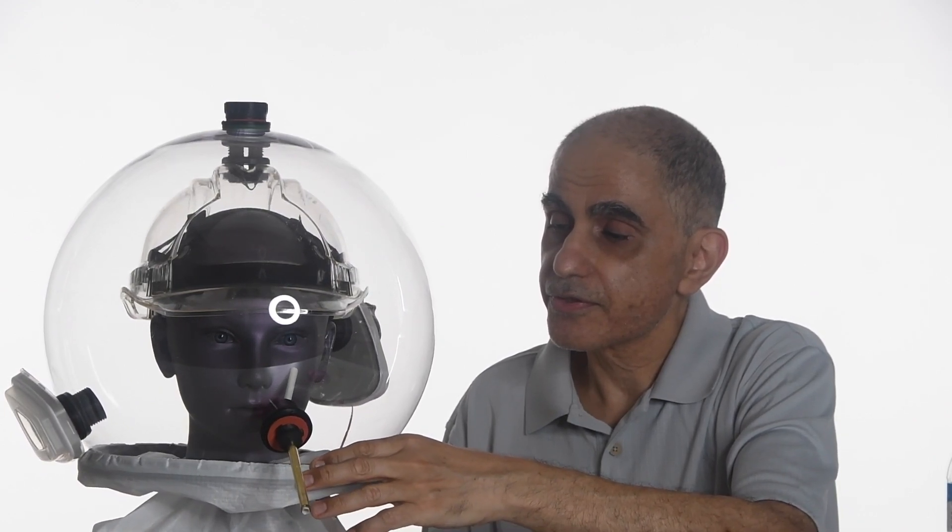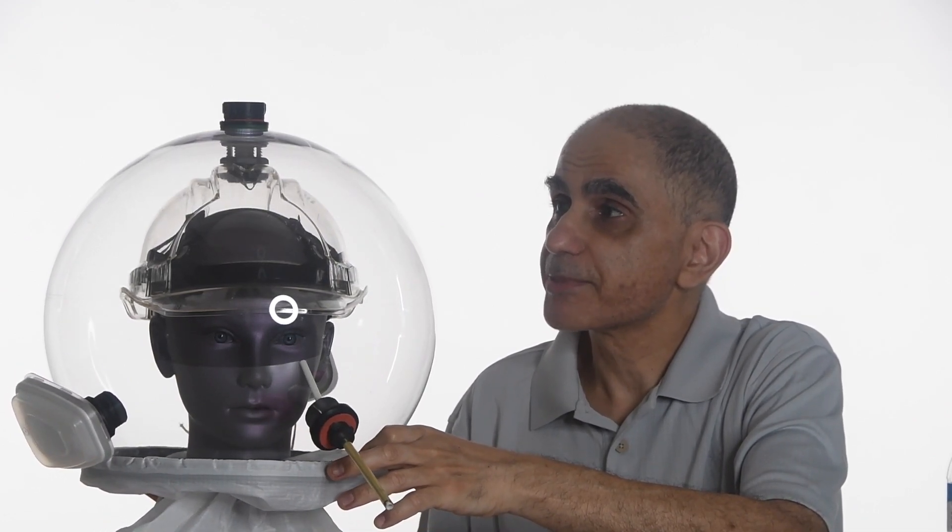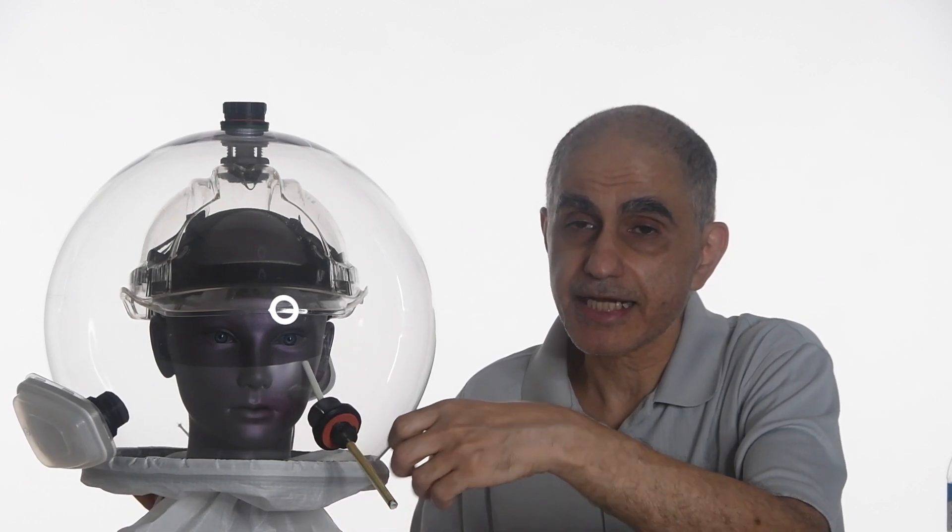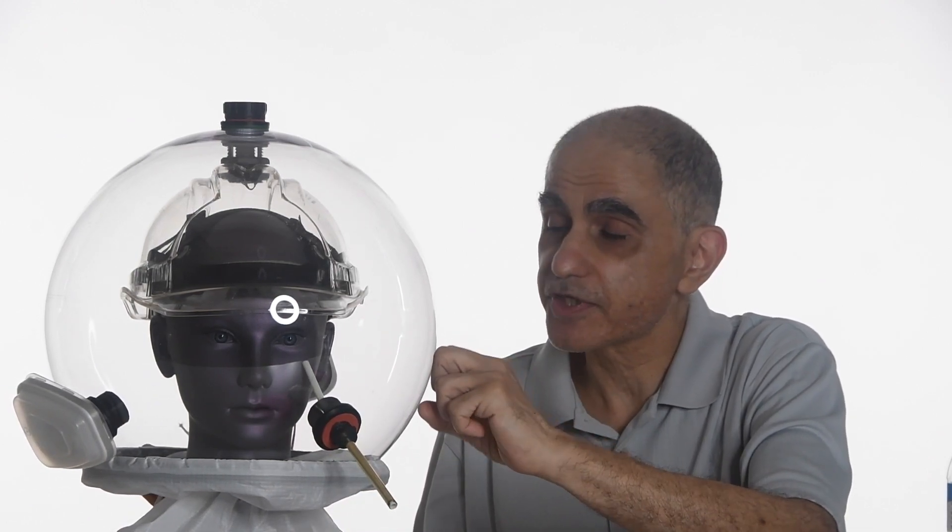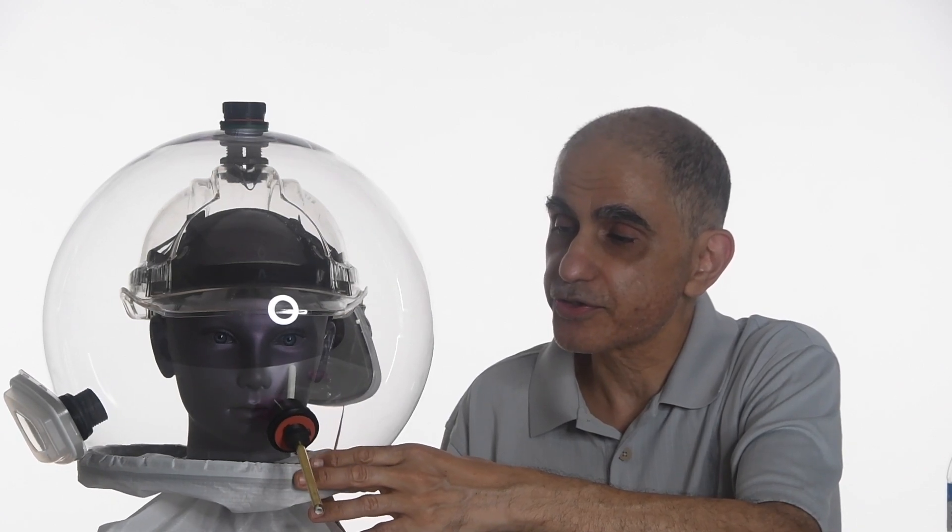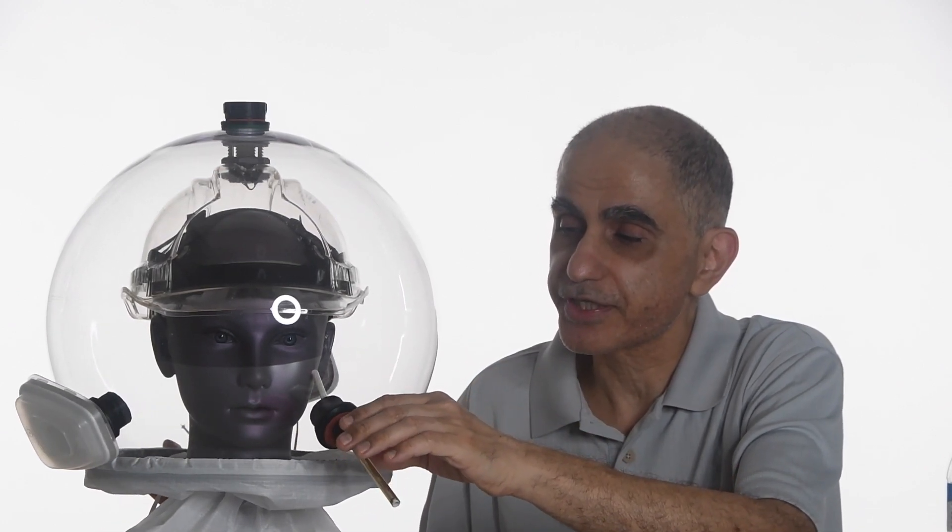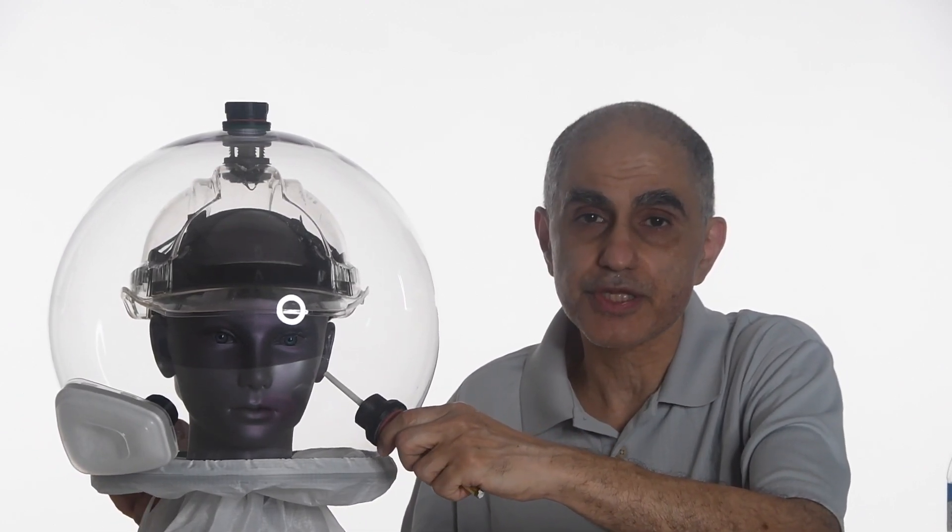The shell is mounted on a swivel. The shell is attached via a swivel connector to the hat so that you can rotate it and basically bring the drinking port within reach.